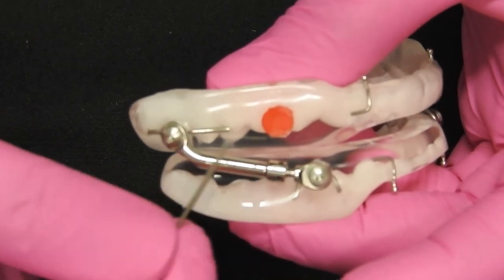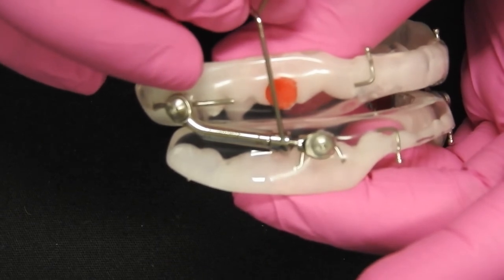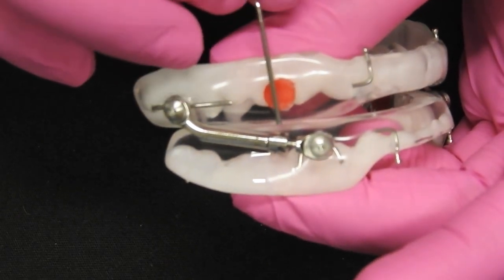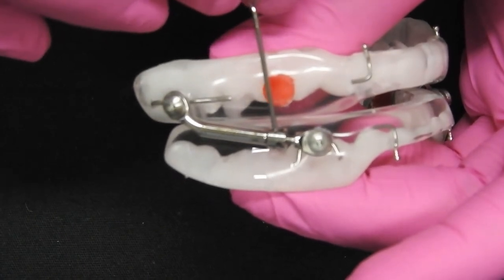This is the arm of your device. You have pinhole titration holes on your nut. This is what we will be turning.